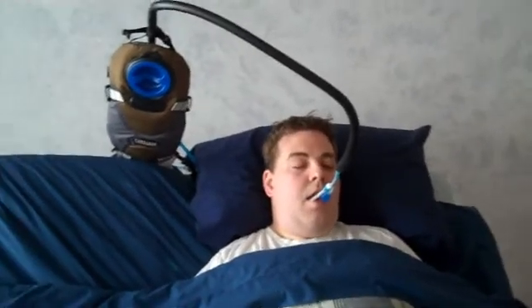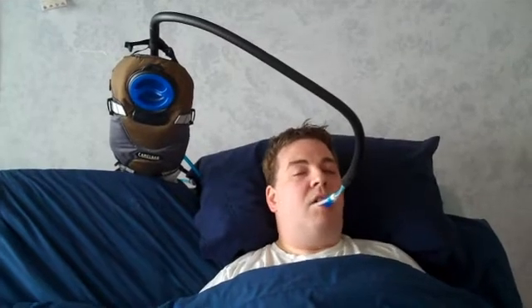We've integrated Camelback's unique hydration system right inside of the whole arm so that it's clean, efficient, and it uses all modern materials. The tubing for water delivery is antimicrobial. On the bite valve, when I bite down on it, water comes out. When I let go, it stops — it's not dripping on me at all.